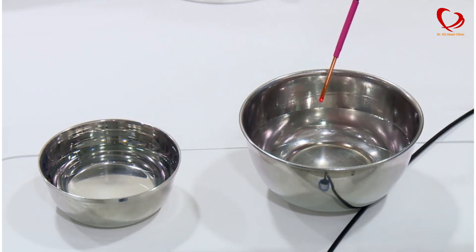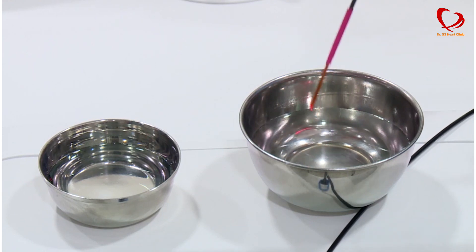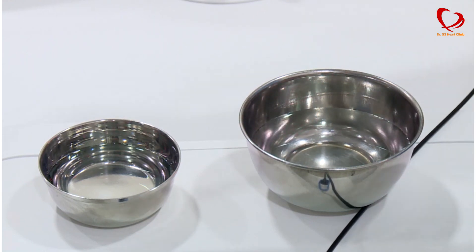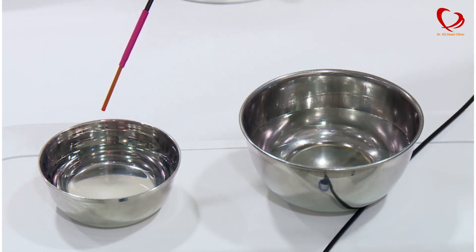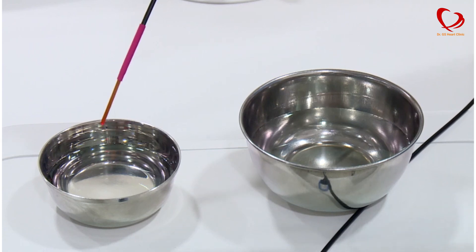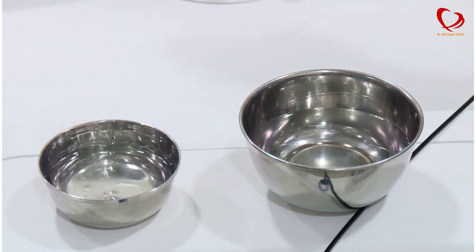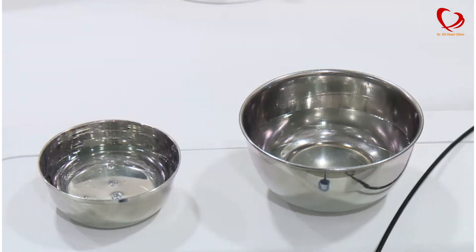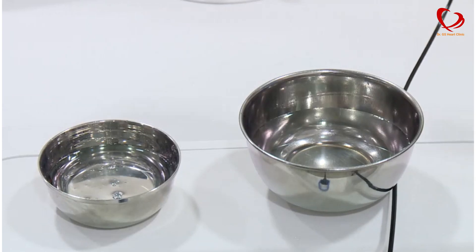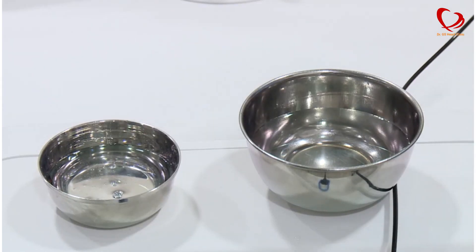As you can see in the saline, there is no cavitation energy. But you can see cavitation bubbles in the contrast — look at that. It is very powerful; see the difference, it is huge.